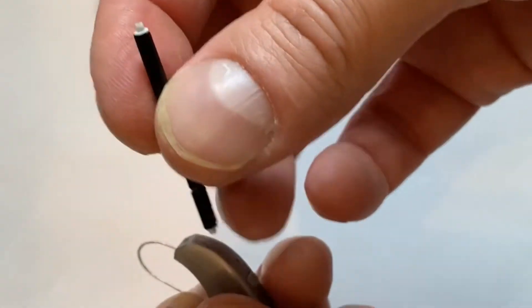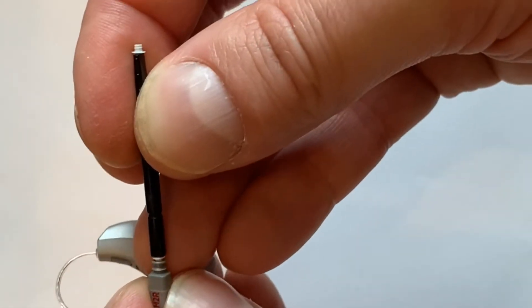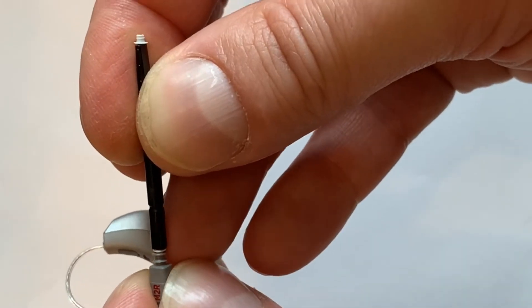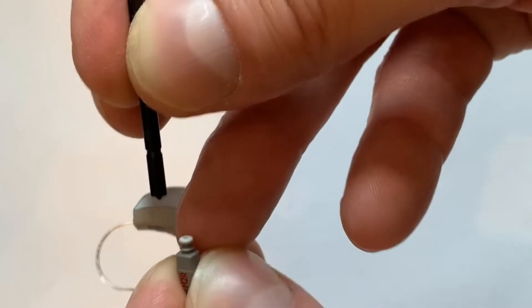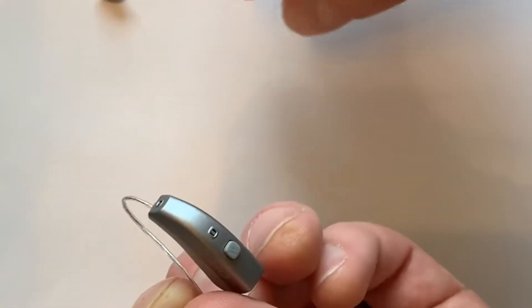Once we've done that, I'm going to turn this stick around and just simply same thing. Push straight in, straight out. Again, it's important. You don't go at an angle. You want to go straight in, straight out. And we've now removed that.